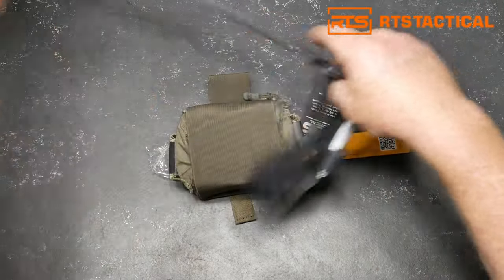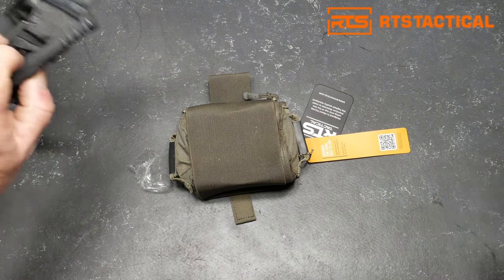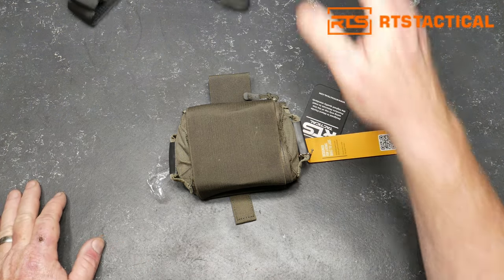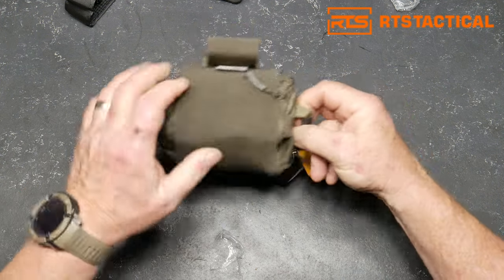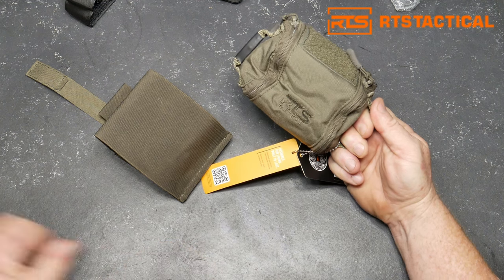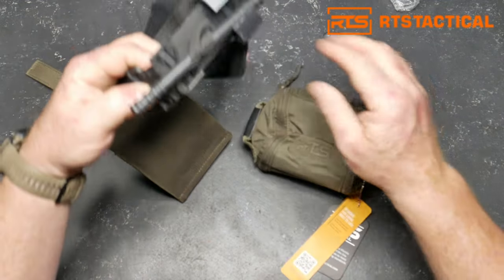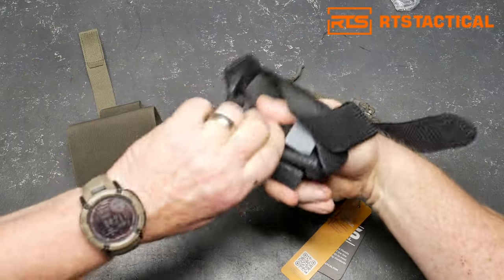This is a lot nicer than what I had. You go ahead and tighten that bad boy up and you're not bleeding to death. Medical training in general has saved more guys than anything. So stop the bleeding — you've got your tourniquet on there, wrap it around your leg and reach back from left hand to right hand. This thing pulls out just like that. You can throw this to someone, push it out, punch it out to somebody, get it taken care of, and tighten it up.